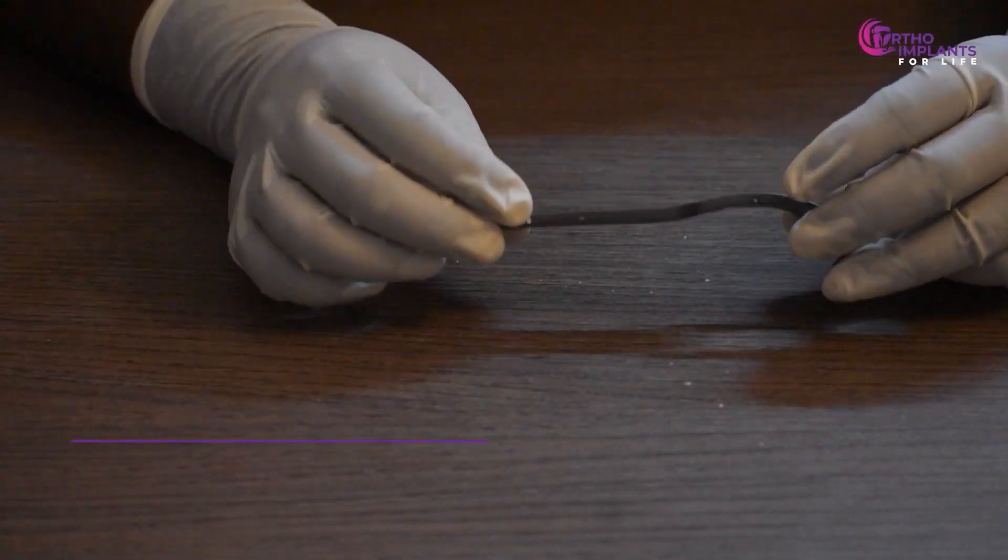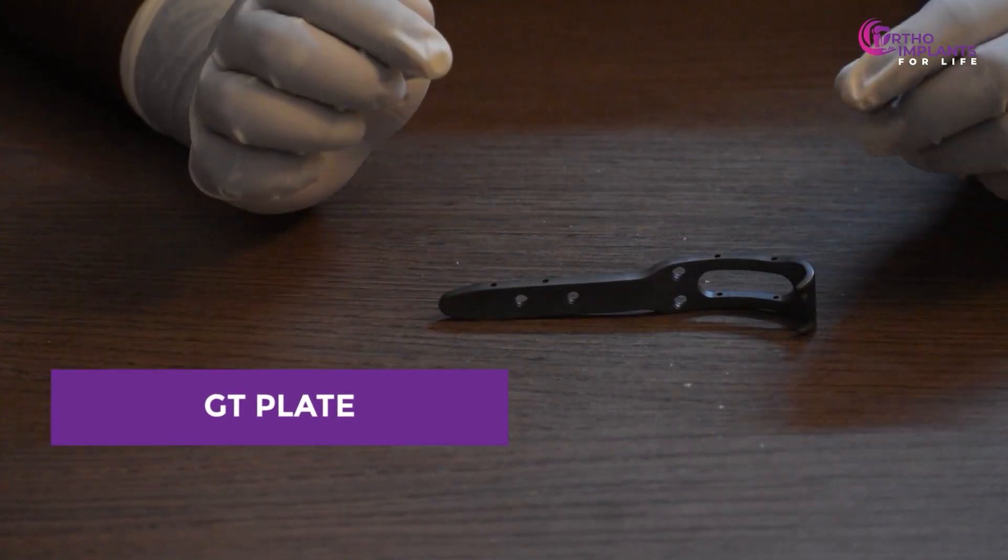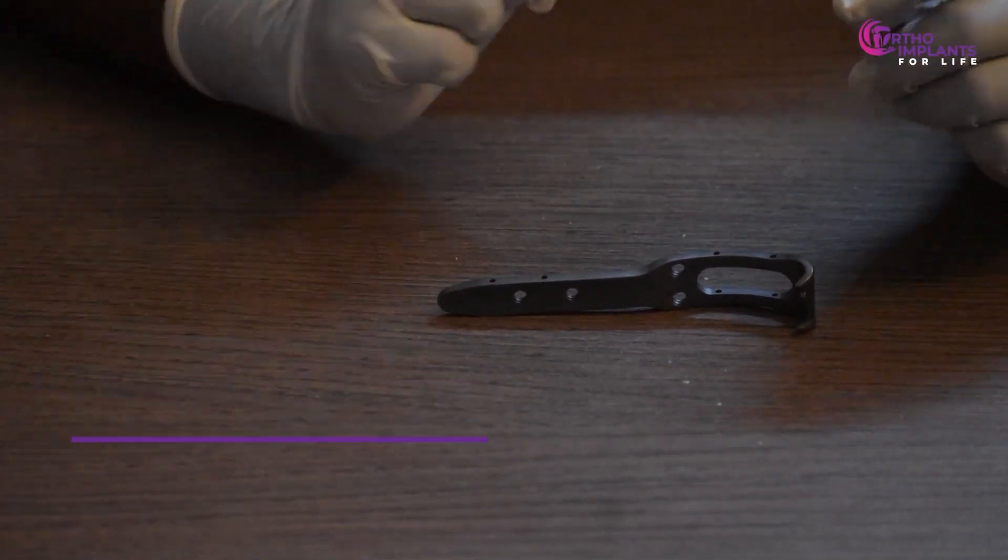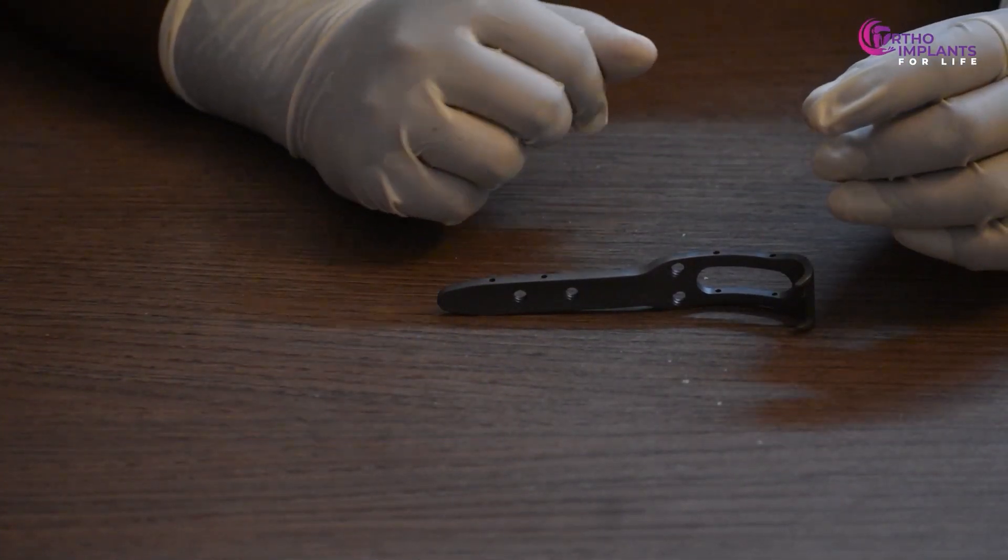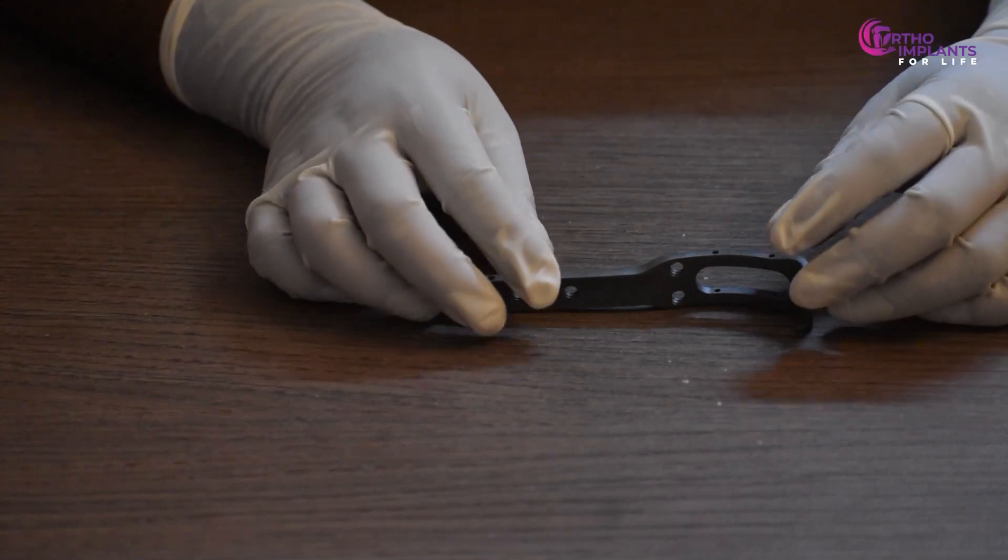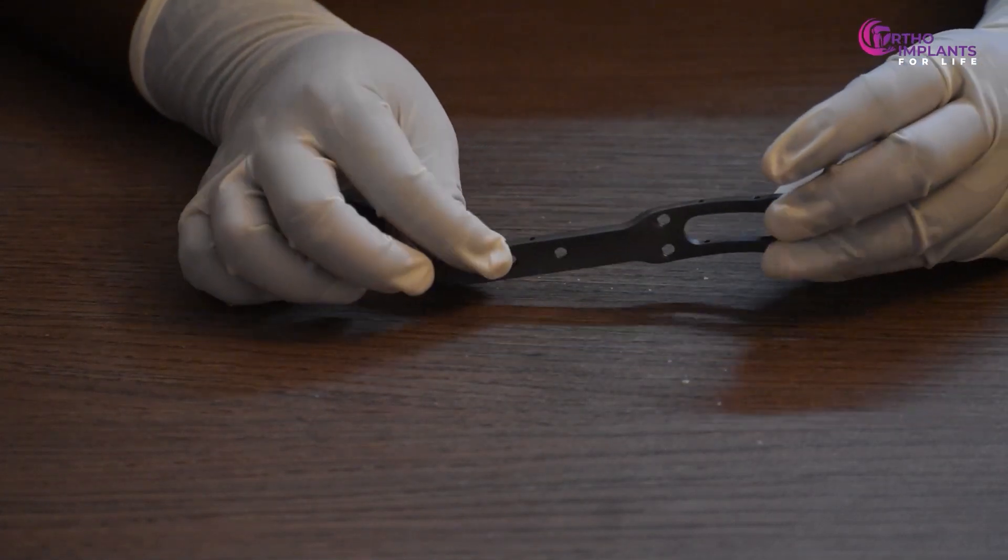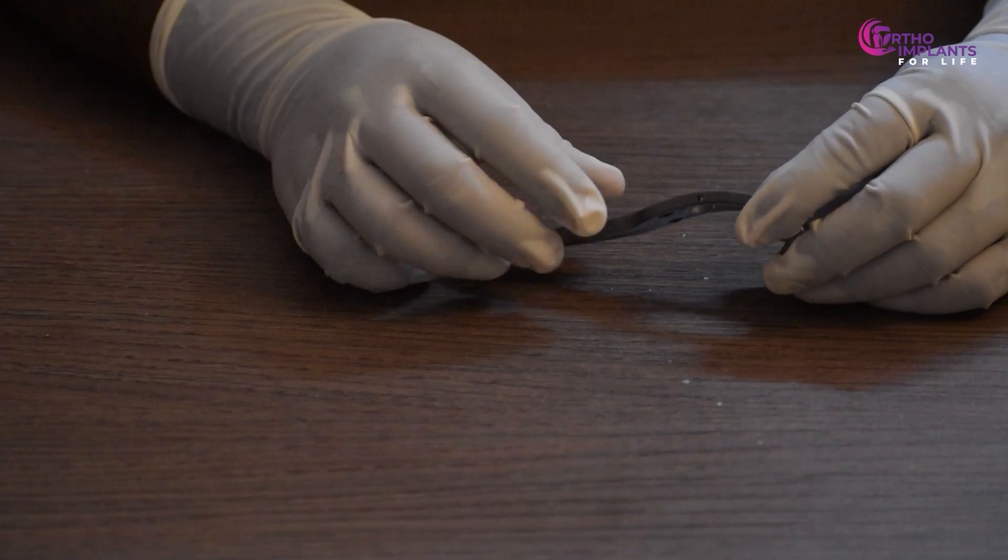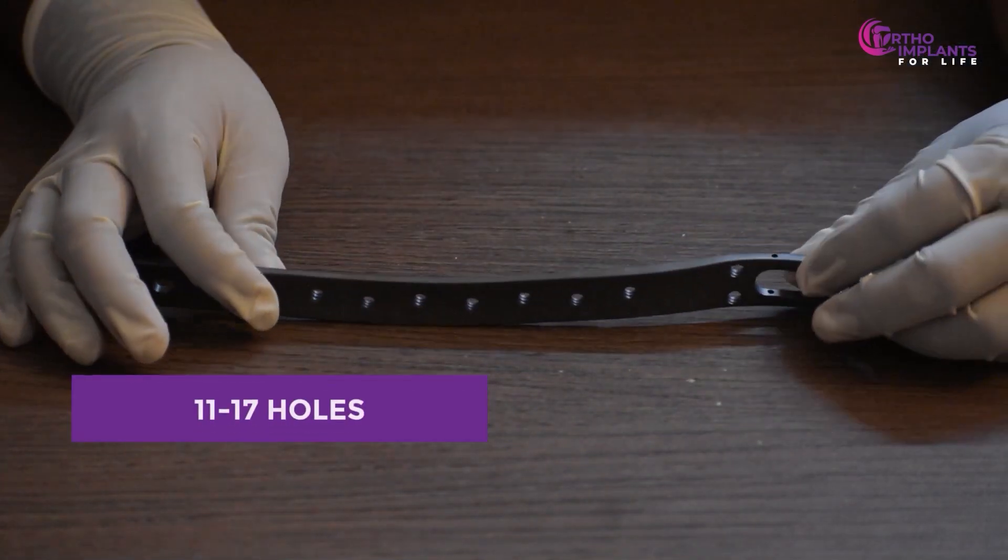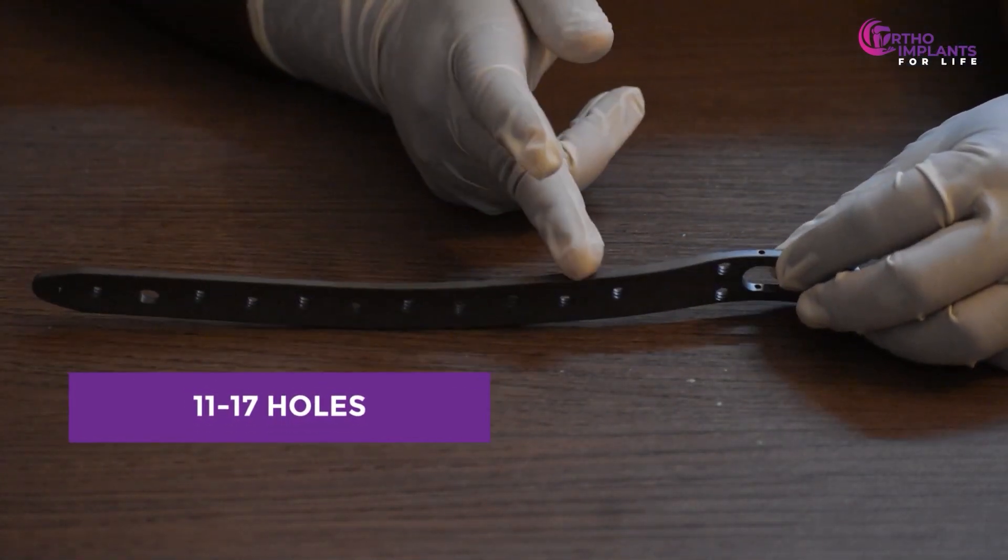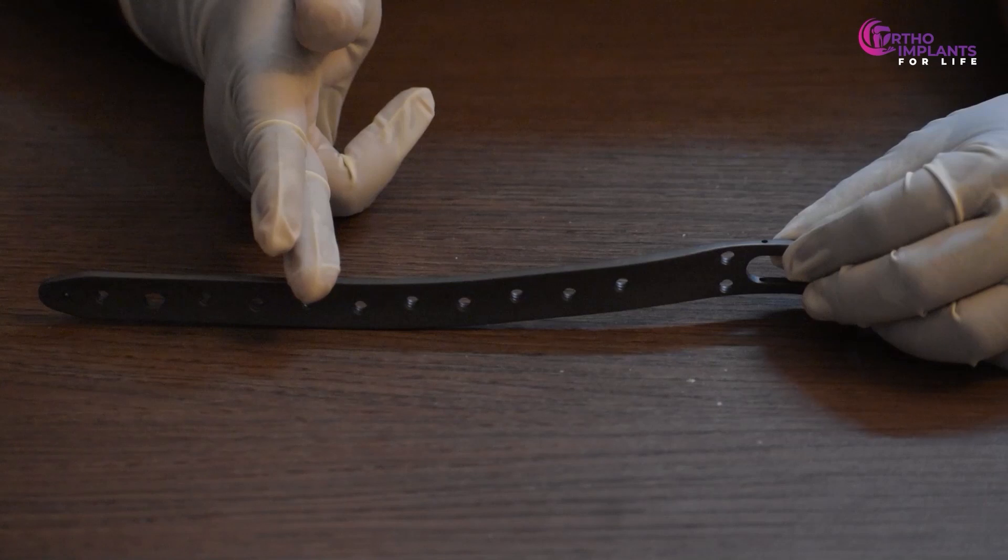The smaller plate is known as the GT plate and it's used when the patient has a fracture in the greater trochanter, GT, or for smaller fractures during normal prosthesis procedures. The periprosthetic plates have 11 to 17 holes and are available for the left and right leg.